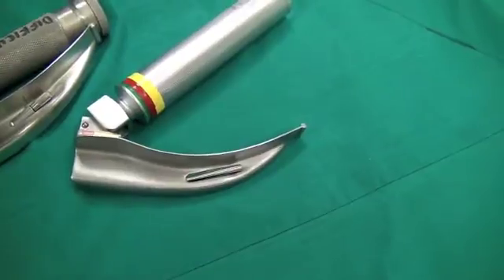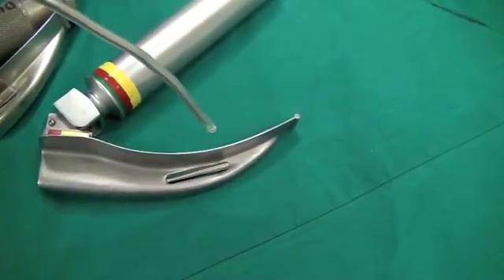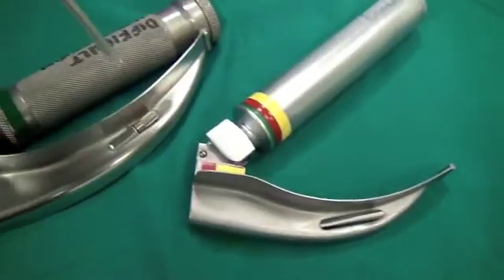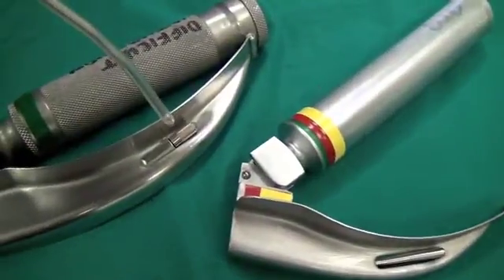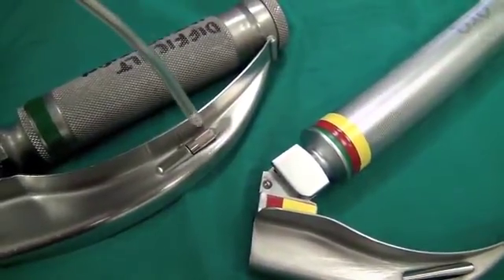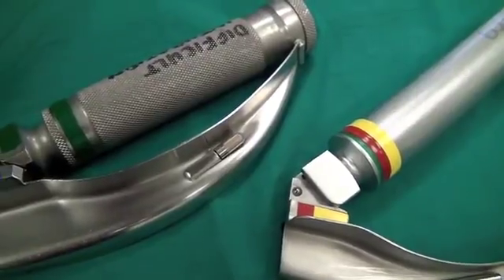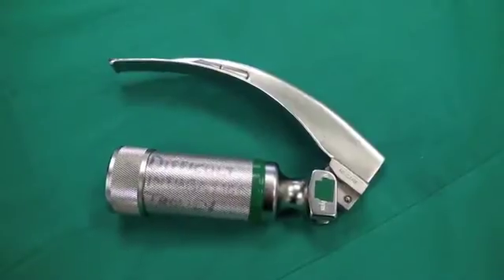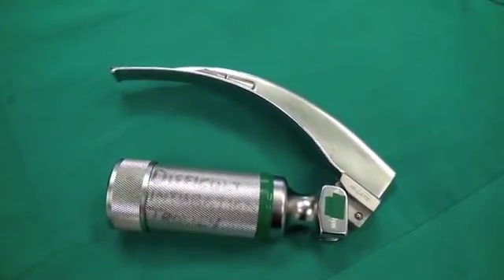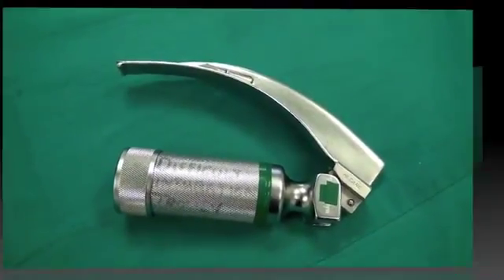The more modern laryngoscope has a cold light source, whereas the older laryngoscopes have a bulb at the end of the laryngoscope, and you need to ensure this is screwed on tightly. In obstetric anesthesia, it's preferable to have a laryngoscope with a short handle.